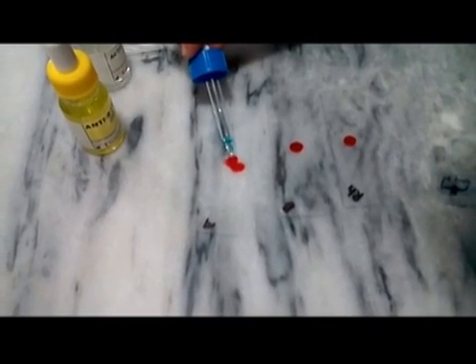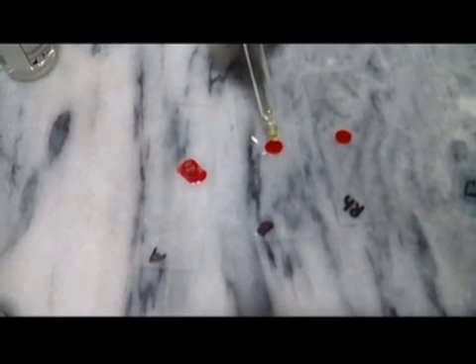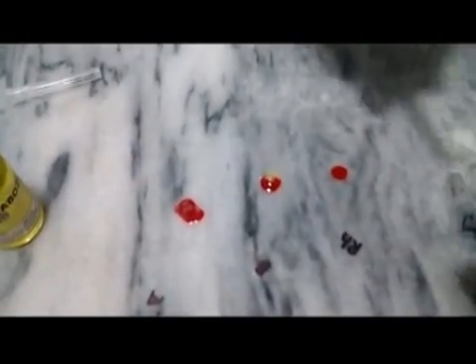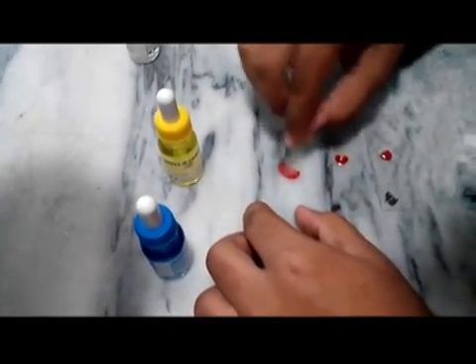Now I will put one drop of anti-serum A on this slide, one drop of anti-serum B here — one drop is enough for the test, so I am not using more — and one drop of Rh anti-serum. Now we will mix them, but remember to mix with a separate part.